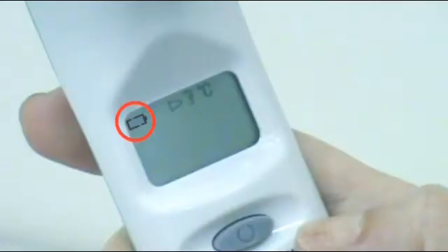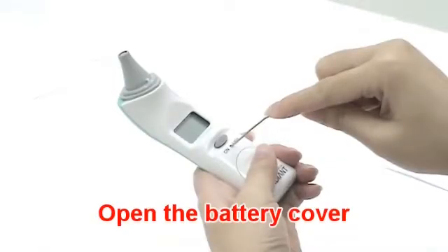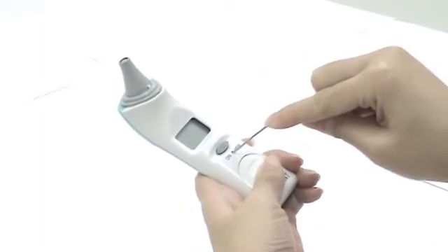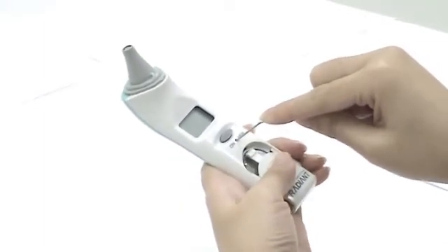When the low battery icon appears, please change the battery. Insert a pointed object into the battery cover pinhole. Meanwhile, use your thumb to push the battery cover out.